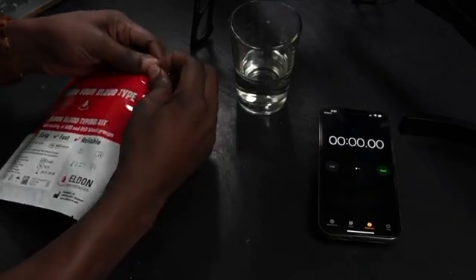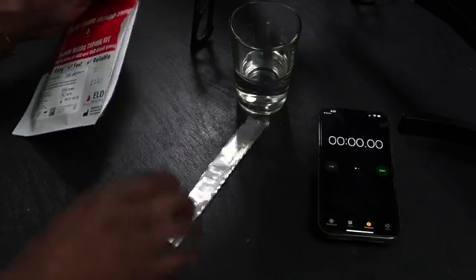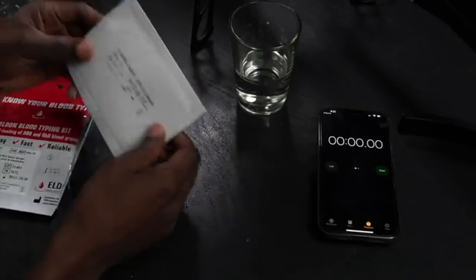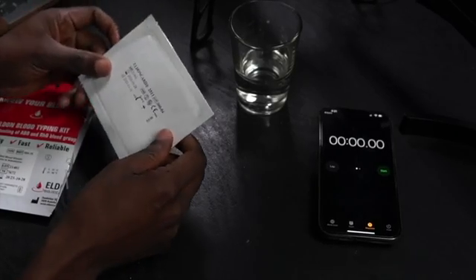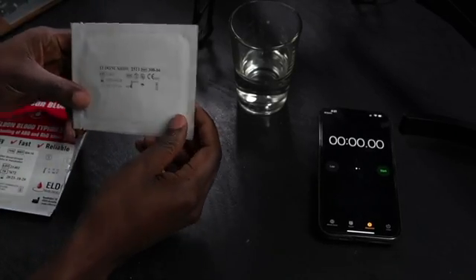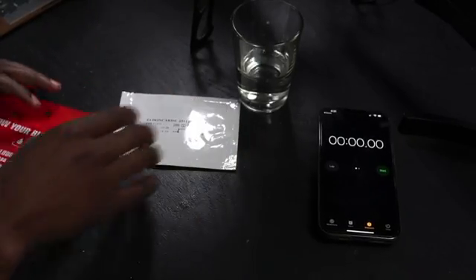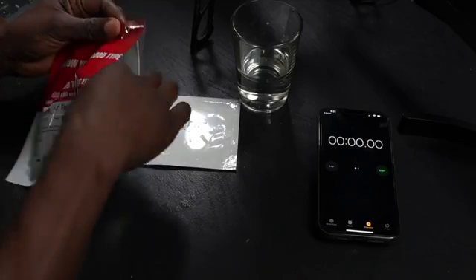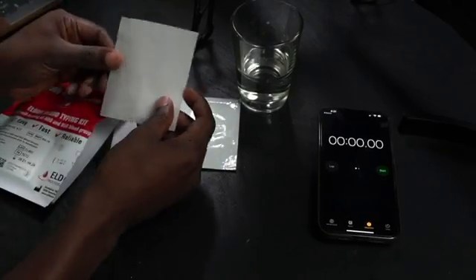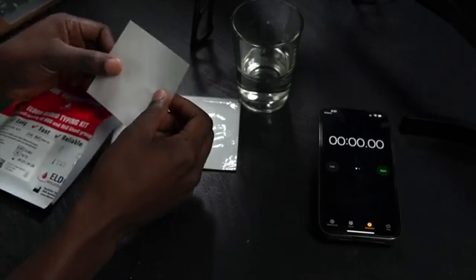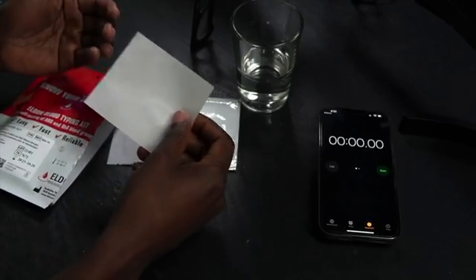We're gonna go ahead and open up this package and see what we have on the inside. You will see right here we have this other packaging, and this is where we're gonna have the actual Eldon Card. So I'm gonna keep it closed for right now until we're ready to use it. But let's see what else we have in here. We have this little piece of plastic. It's basically when you're finished with your test, you can use this to kind of laminate the actual card so that you can keep it for future reference.